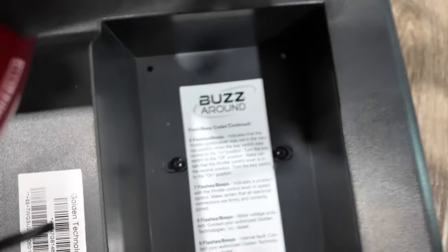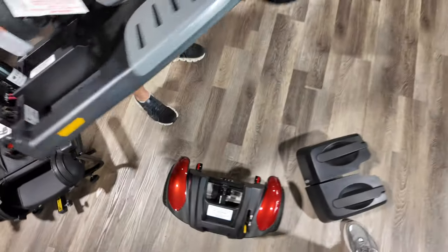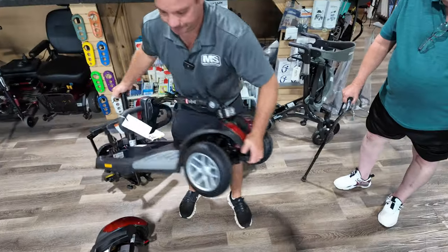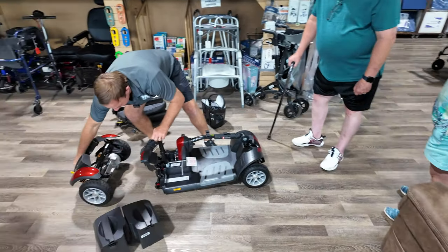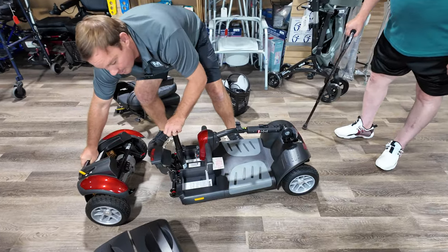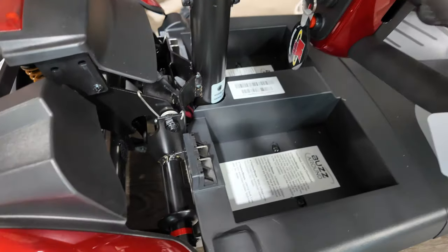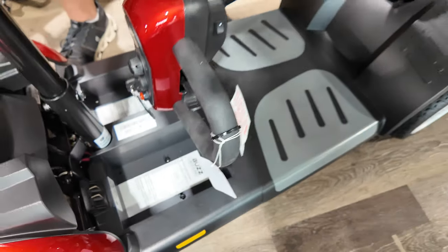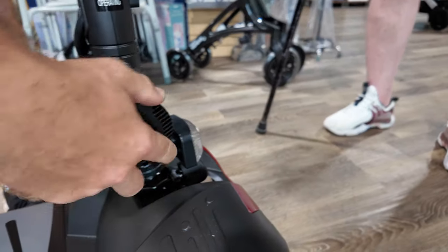This front half of the unit is about 50-something pounds. There are your springs at the front. They've put a bigger motor in the back. We're going to put this right back together — just align the front to the back.